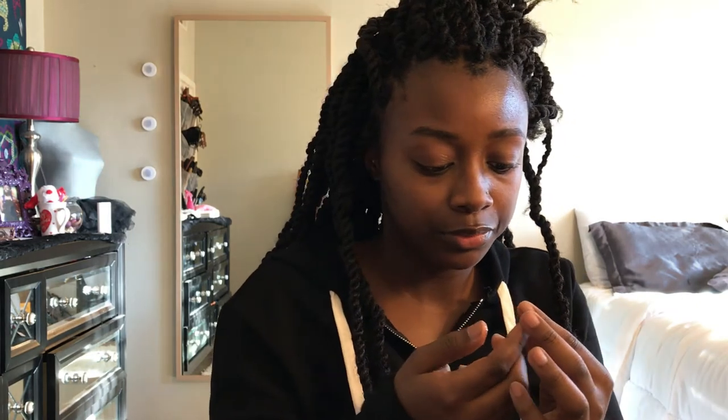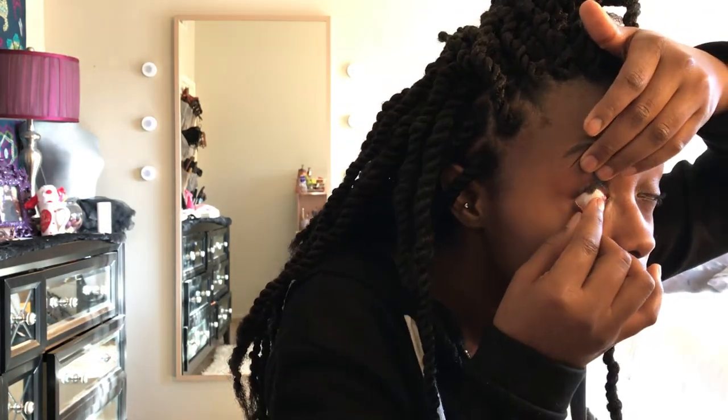These are amazing. I'm going to wear these for a while, maybe a week or so, and come back and make another video on how I feel about them. I can't feel them at all — they're just so soft. I wonder if it's something in the solution or just the fact that this lens is so soft. Even better the second time around. I'm very, very impressed and I will definitely be renewing my subscription.